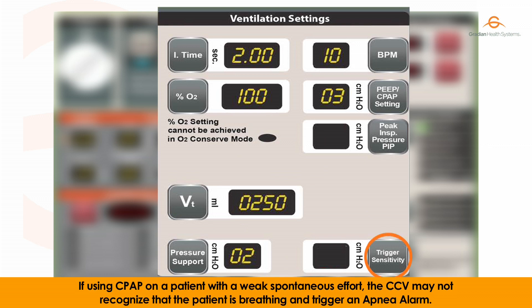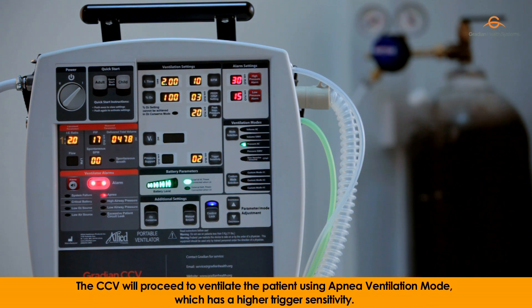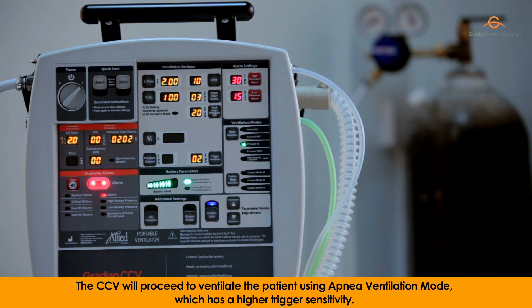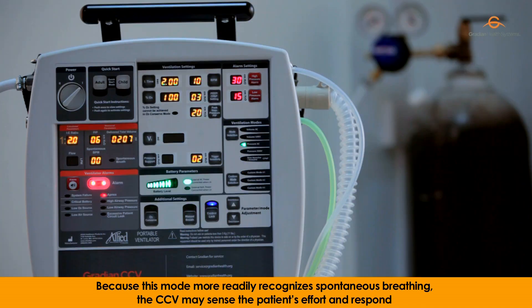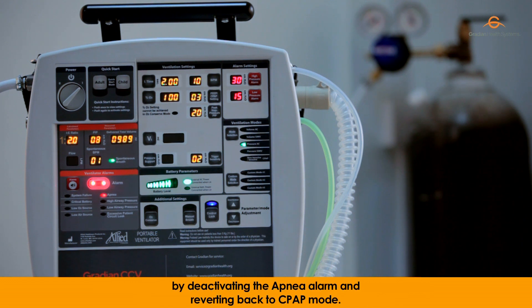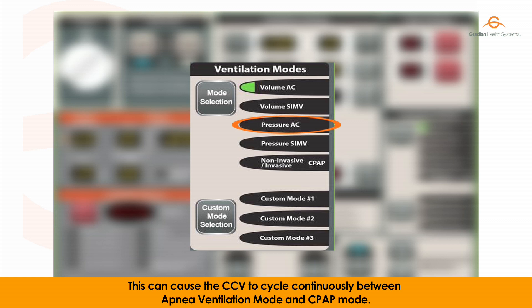If using CPAP on a patient with weak spontaneous effort, the CCV may not recognise that the patient is breathing and may trigger an apnea alarm. The CCV will then ventilate the patient using apnea ventilation mode, which has a higher trigger sensitivity. Because this mode more readily recognises spontaneous breathing, the CCV may sense the patient's effort and revert back to CPAP mode, causing the CCV to cycle continuously between apnea ventilation mode and CPAP mode.